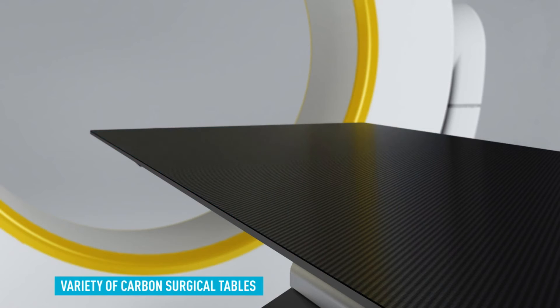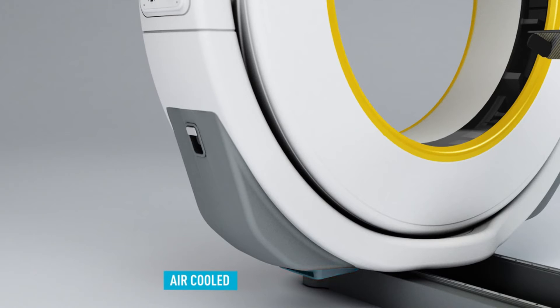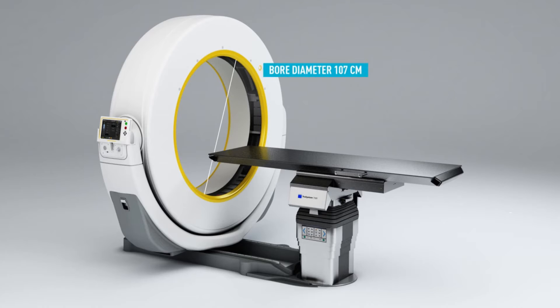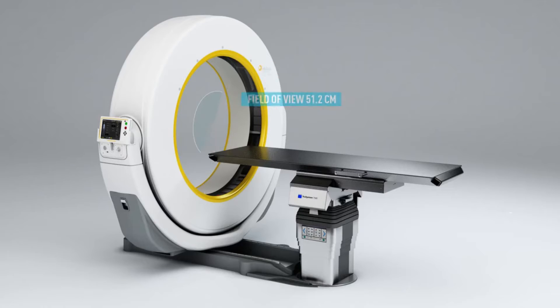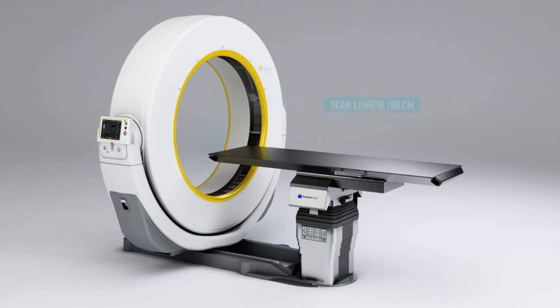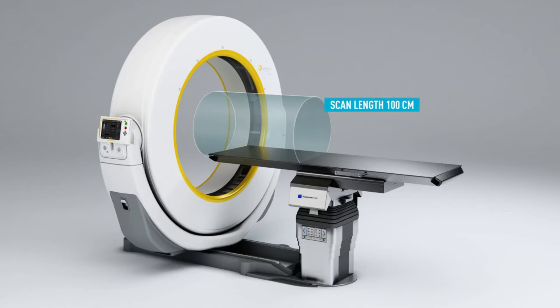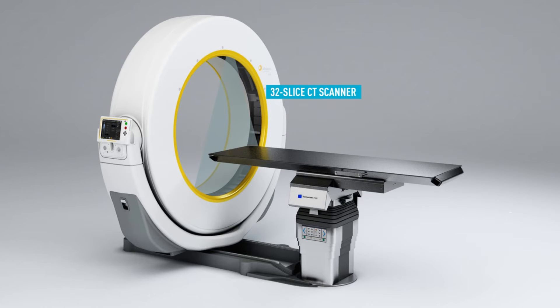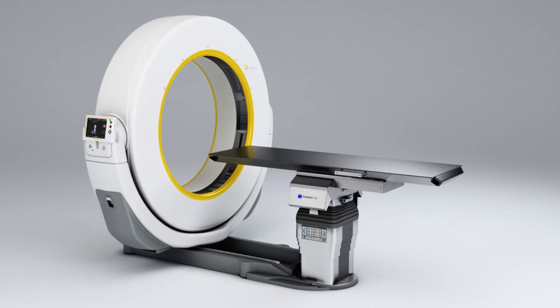The gantry also includes a laser light used to position the patient within the scanner. Control panels located on either side of the gantry opening allow the radiologic technologist to control the alignment lights, gantry tilt, and movement of the table. In most scanners, these functions may also be controlled via the operator's console. A microphone is installed in the gantry to allow communication between the patient and the radiologic technologist throughout the scanning procedure.